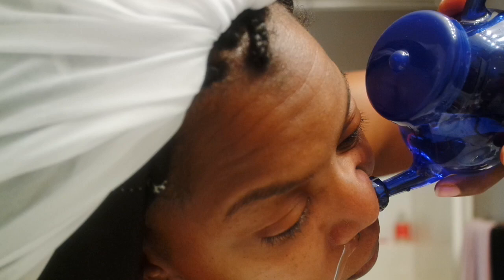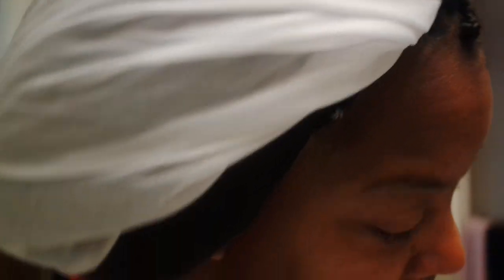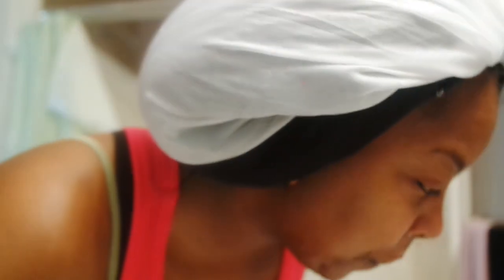It's not that serious, people. It's just a neti pot with water and solution, which I almost forgot to show you guys. I'm just trying to make sure I remember to show you guys, and I almost didn't get all the solution in. So I am going to continue to do this. You see the top of my head — I apologize, guys. I was trying to make sure I could see myself, not just you guys, while I do that. Because it's built — that's what I was trying to tell you.